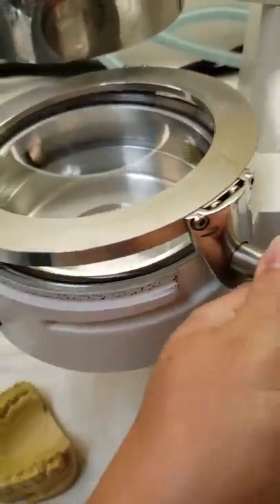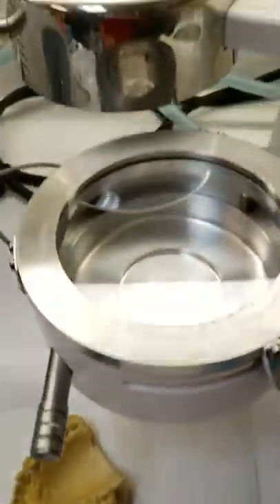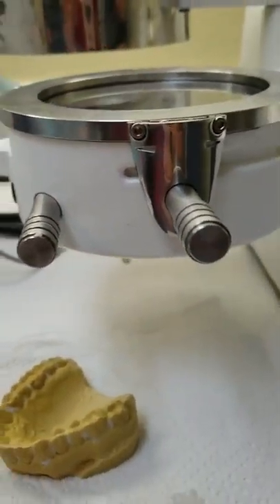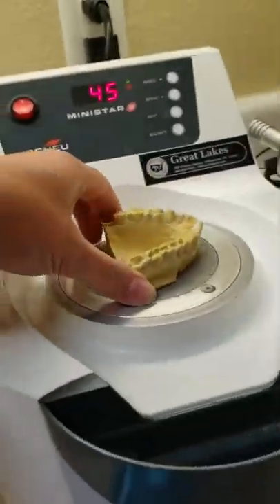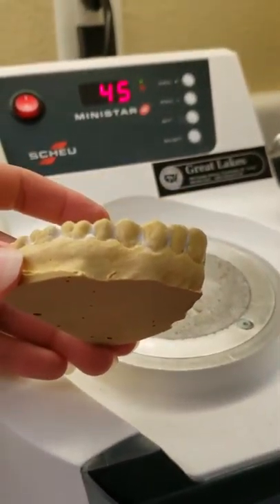The little handle needs to be towards the front. Once you have the lock plate sitting on top, go ahead and lock it tight. These two parts are not going to meet — you just want to make sure you have it slid over far enough.